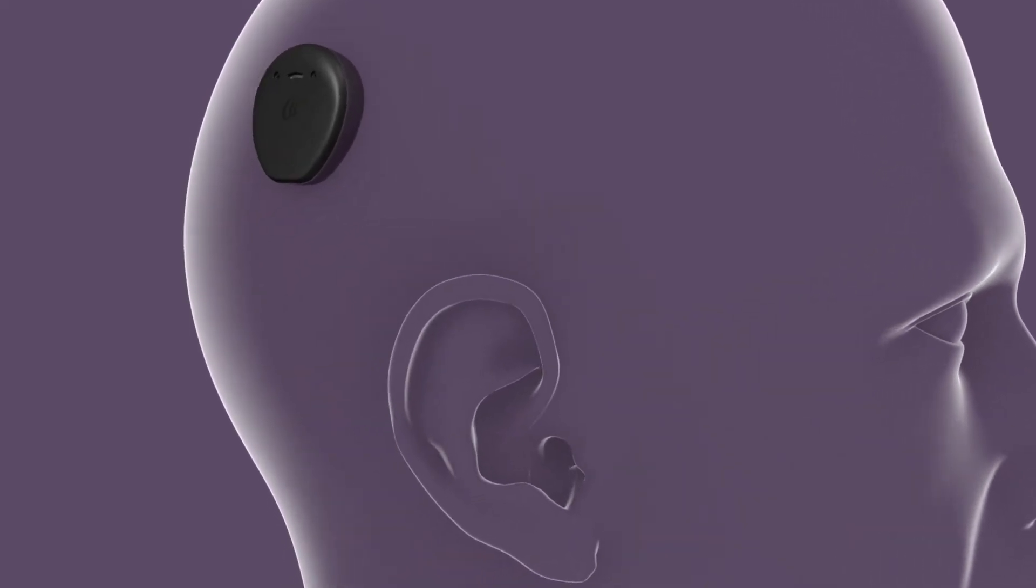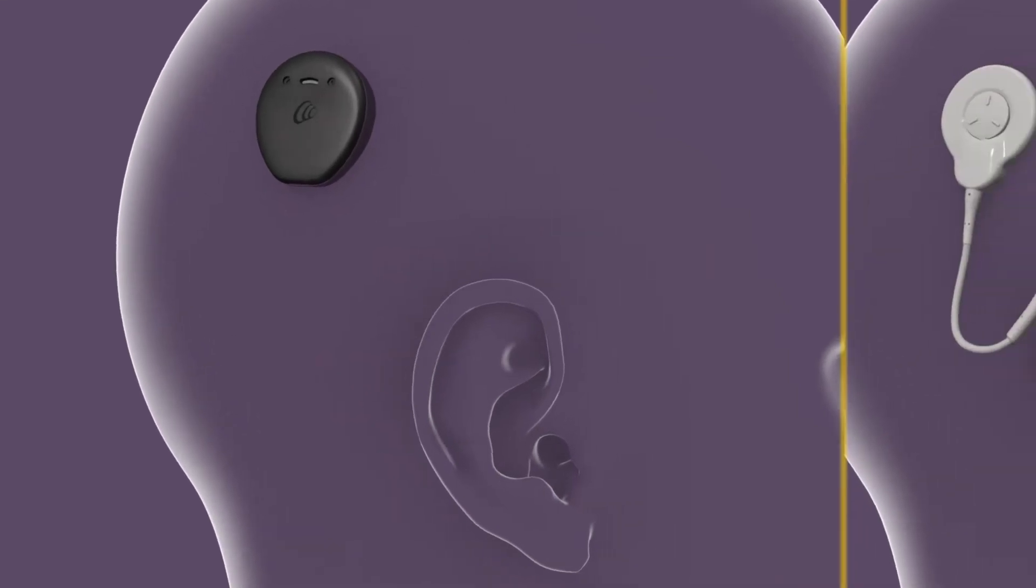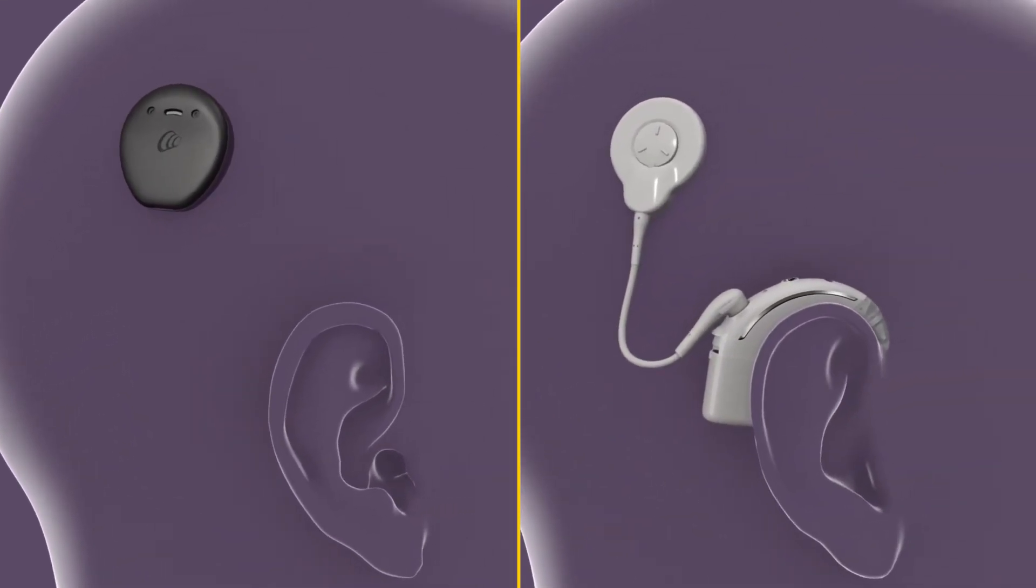The sound processor sits outside the ear and can be worn behind the ear or off the ear.